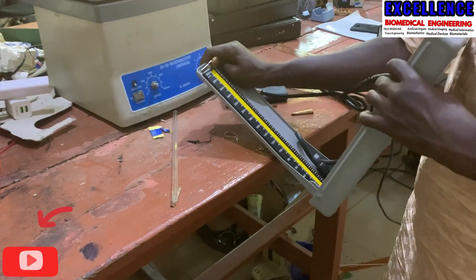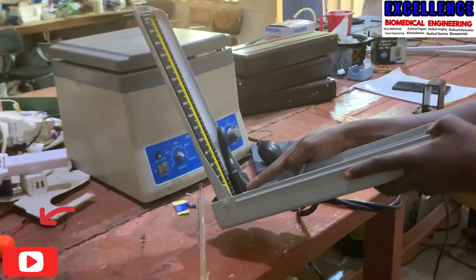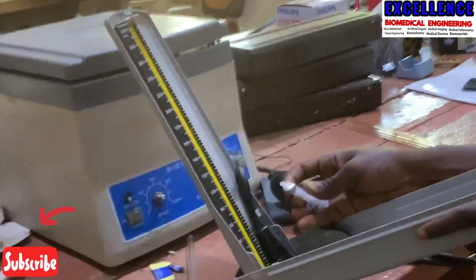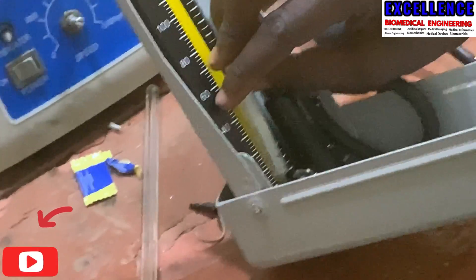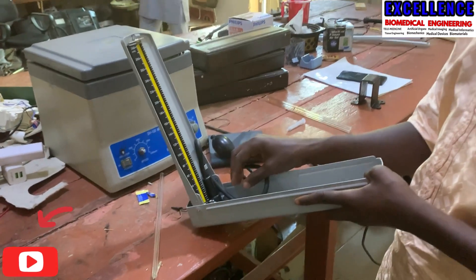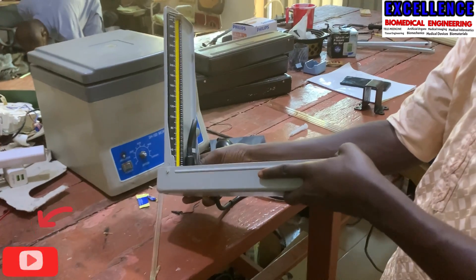You can then easily remove your rod without any stress or problem. After that, you take the syringe which has the mercury. As you can see, the reservoir is now opened. After opening the reservoir, you take the mercury from the syringe and insert it into the reservoir hole. After inserting the mercury, you tilt it back again and lock the mercury tank.